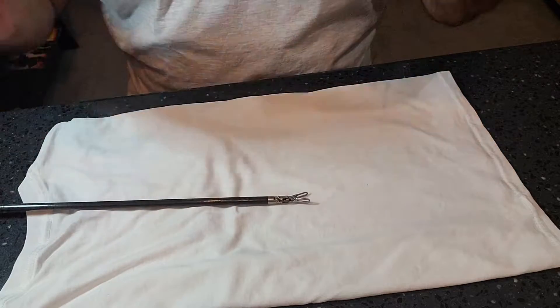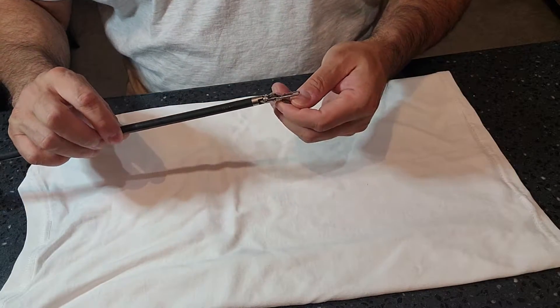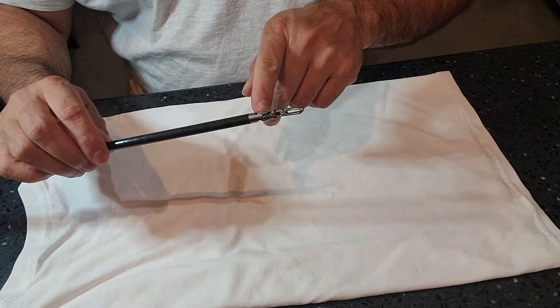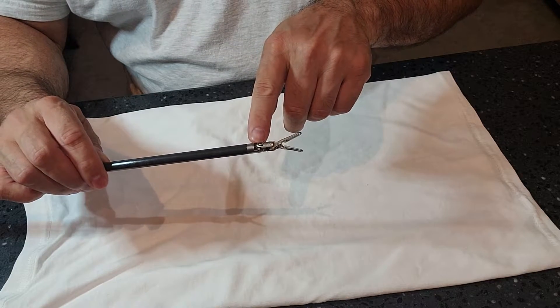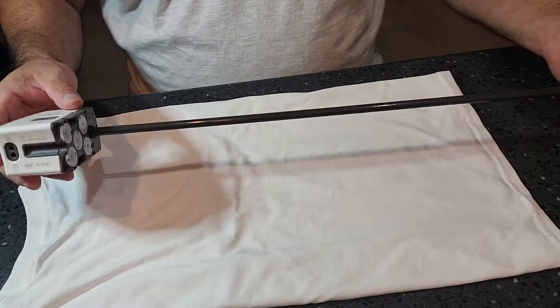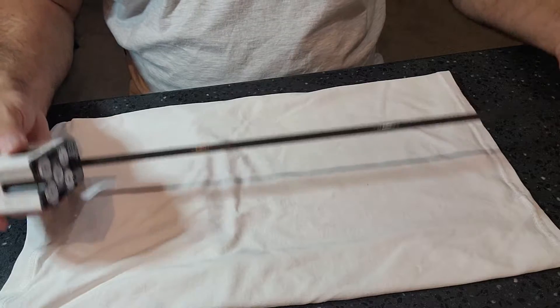In decon, it's very hard with all the moisture to look under lighted magnification. But if your decon is equipped with lighted magnification, you definitely want to look at these components to make sure there is no fraying of the cords or wires in there. Specific to the IFU — I cannot speak specifically because I don't have the IFU in front of me.